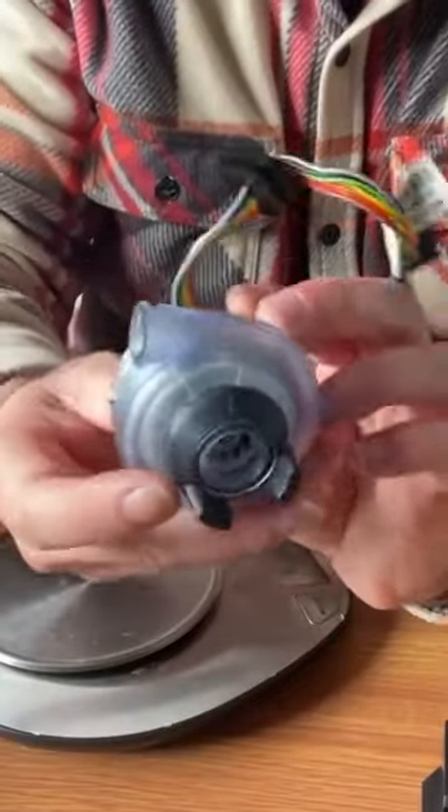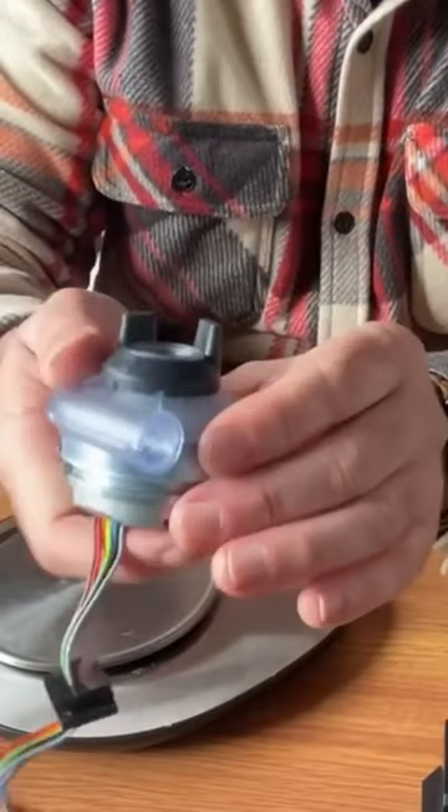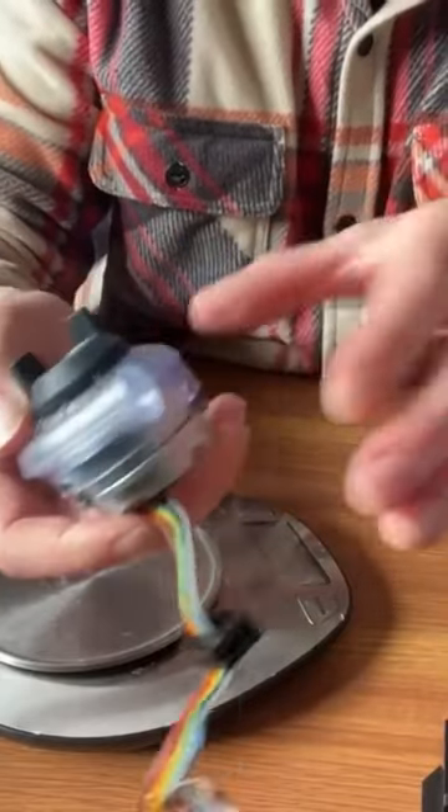Now this is essentially a ventilator blower. It's capable of 40 centimetres H2O. So in a CPAP machine doing 20 centimetres, which is the max, it's basically in cruise control.